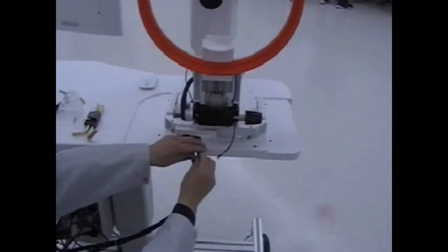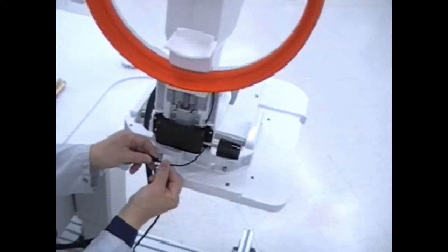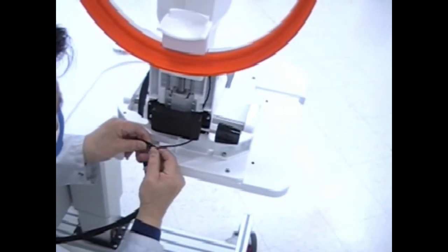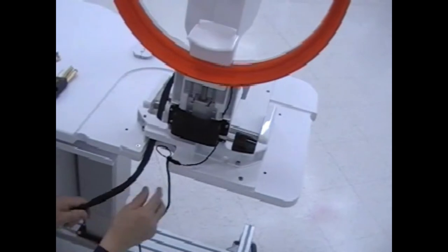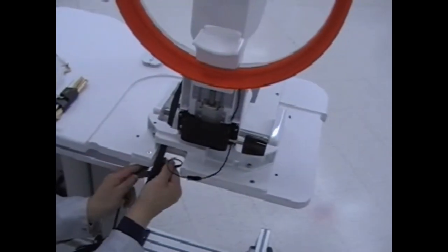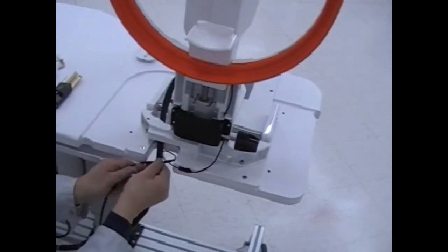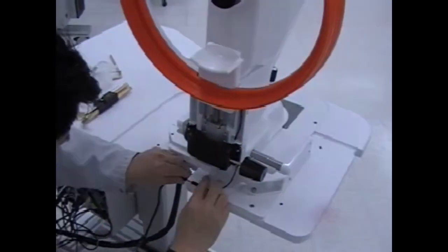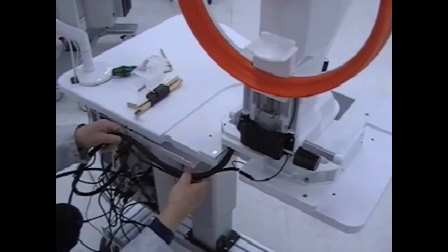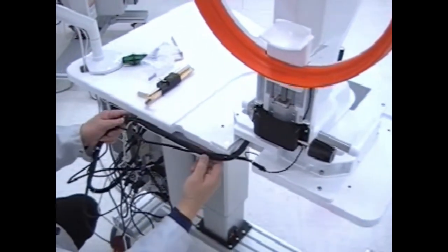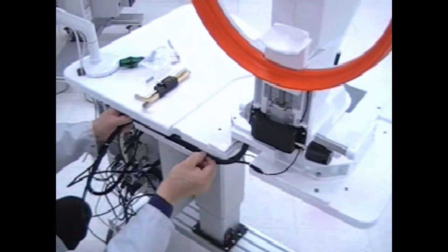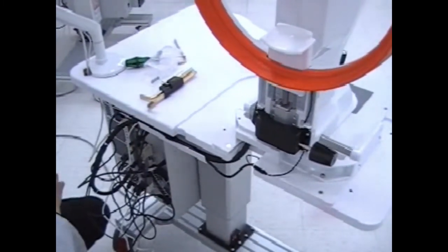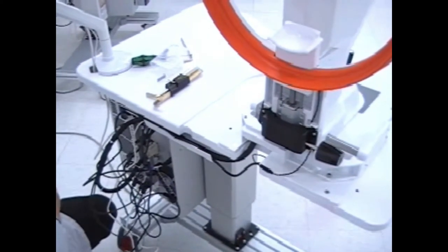From the chin rest, ensure that you connect the power for the external fixation if not done earlier, and then run the scanner cable and base cable through the guide. It's easier to have the guide attached and loose and then just place the cables in it. Then tighten the cable guide down.